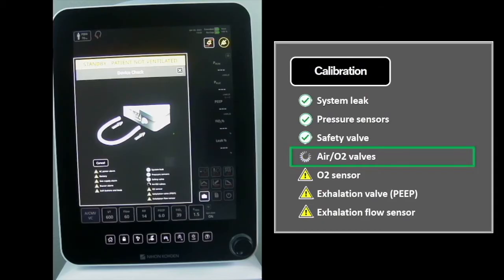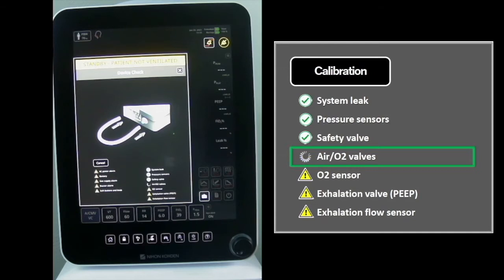In the second stage, the calibration check, the software selects the voltage corresponding to 20 liters per minute from the calibration table and verifies the flow is in range for each PSOL valve.